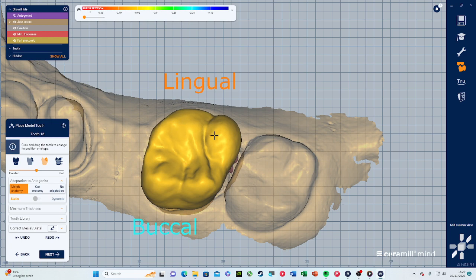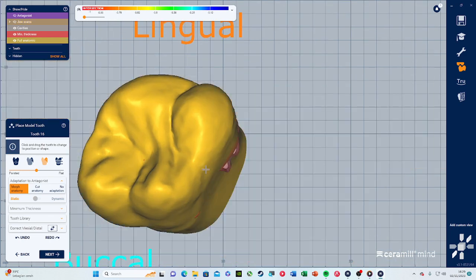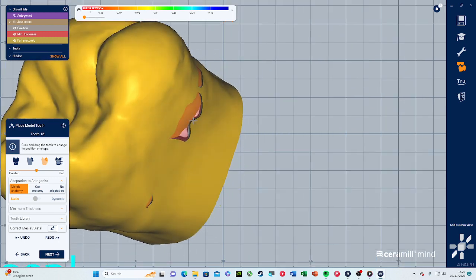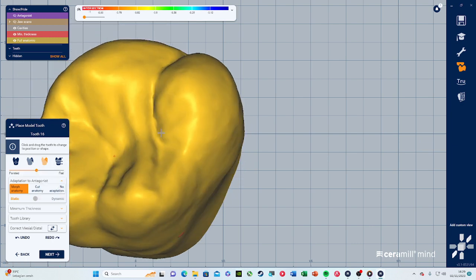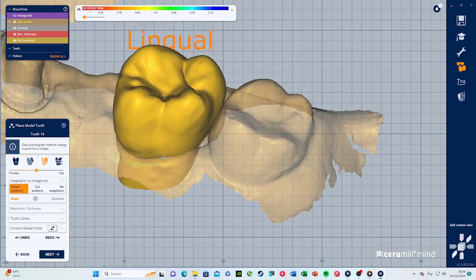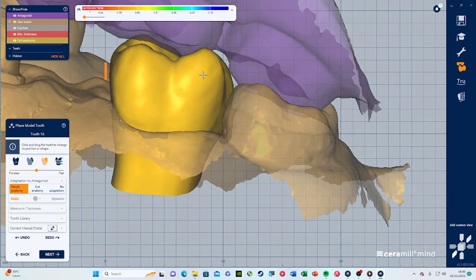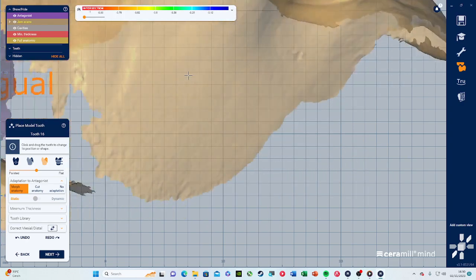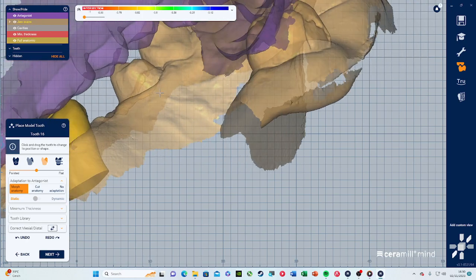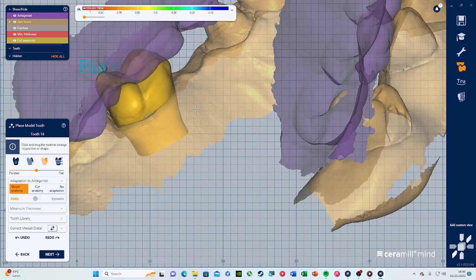Move it a bit to make it symmetric. Some areas still show purple — that's not good, we want to cover that with the crown. Let's check the antagonist — no overlapping, that's good. Check if it's hitting the antagonist — looks all right. Maybe bring it down just a bit on that side, and this side also bring down a little. Let's say this case is done.